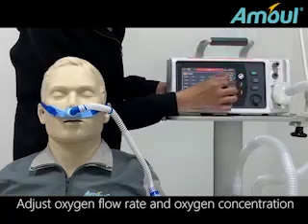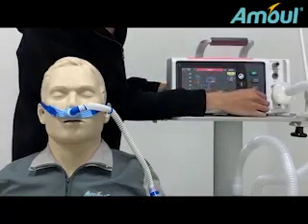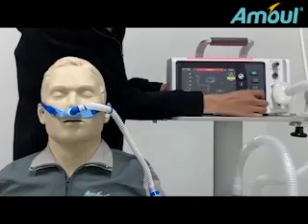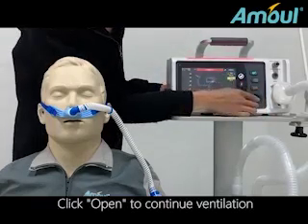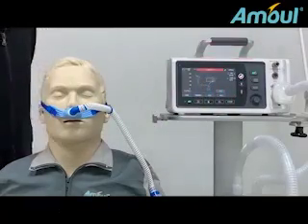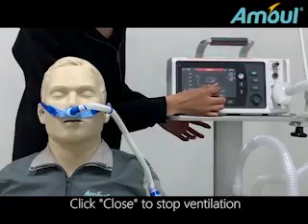Adjust oxygen flow rate and oxygen concentration. Click Open to continue ventilation. Click Close to stop ventilation.